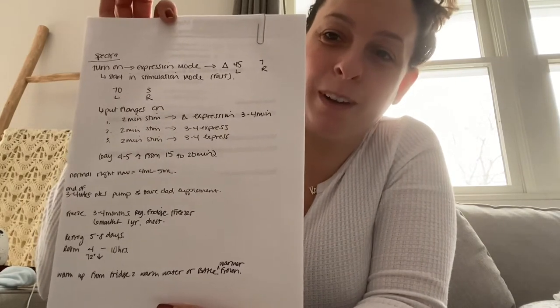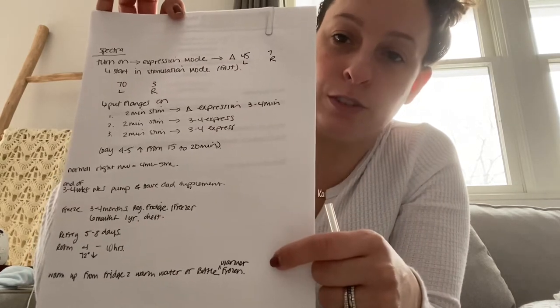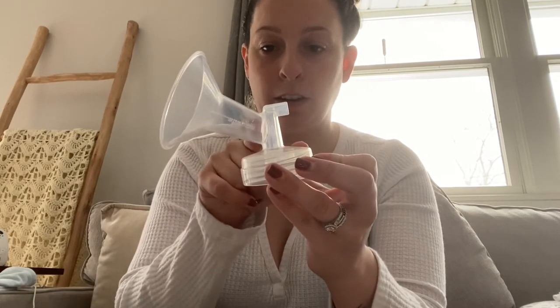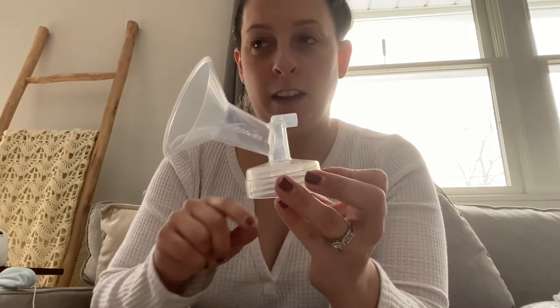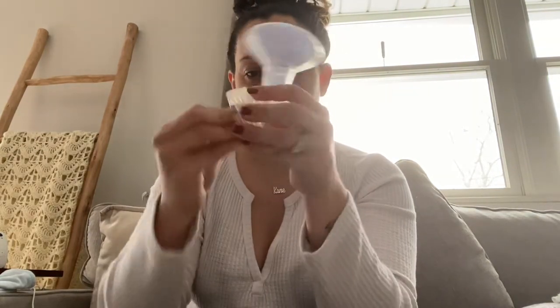I'm going to send you the picture of everything the lactation consultant told me — I wrote it down while I was about to get discharged from the hospital, so it's all the settings and notes she told me. On the other side of the tubing you'll plug in your put-together flange. The flange is where the milk will go in — you'll see it dribble in there. In the beginning when you're first pumping you may not notice much milk, but eventually it sprays through there and the milk goes down into the chamber.